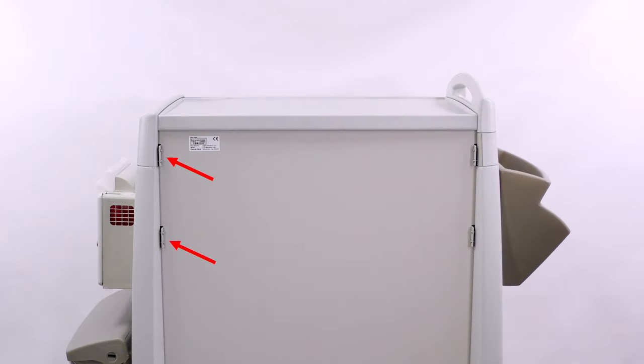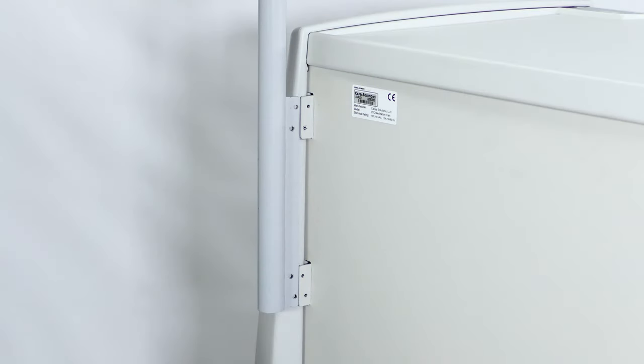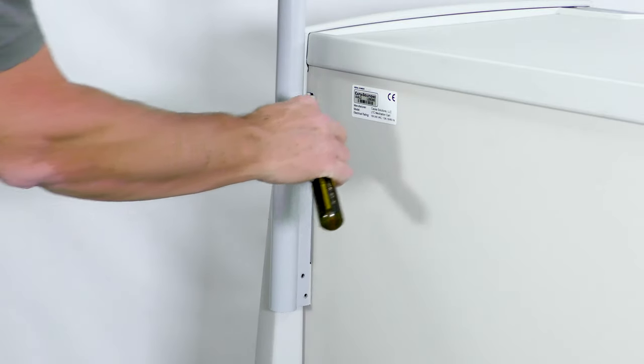The computer mount post normally attaches to the right side of the Avalo cart. Remove any screws from the bracket if present. Line up the bracket to the post, aligning the four holes.